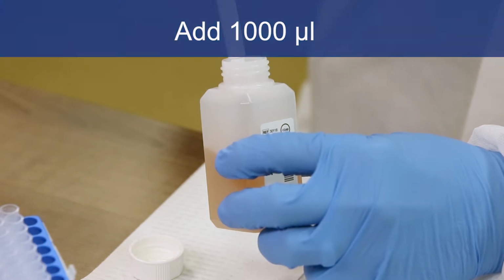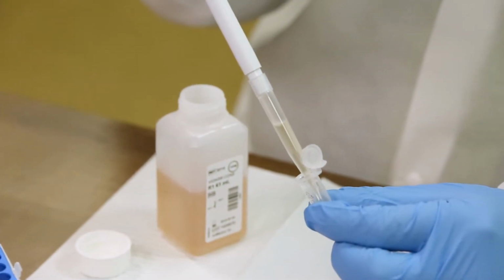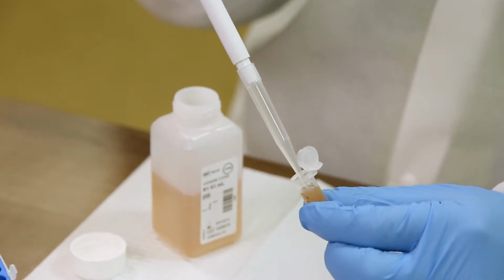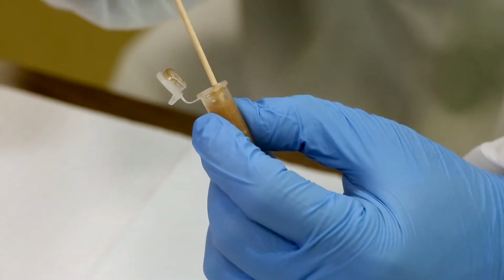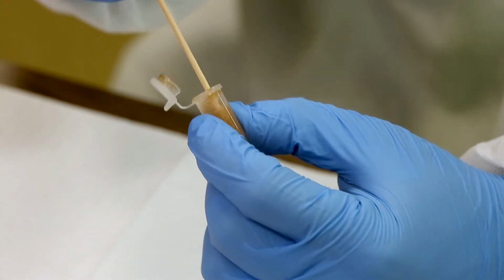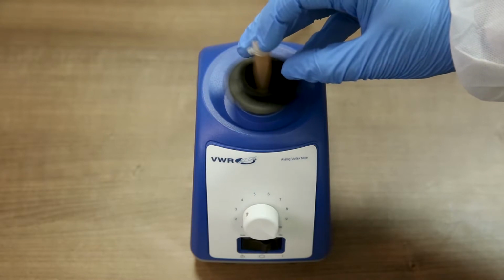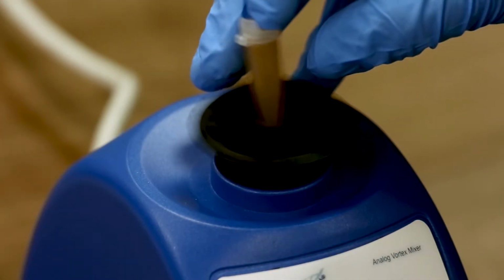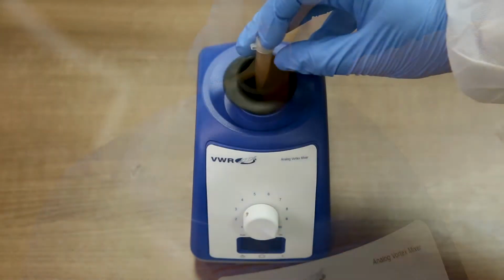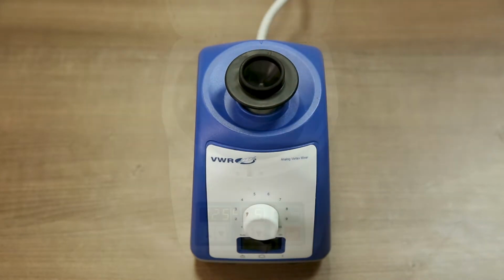Next, add 1,000 microliters of pre-treatment reagent R1 to the sample tube using a pipette with a disposable tip. Emulsify the stool sample using the applicator stick, and then mix using a vortex-type mixer until the sample appears homogeneous. It is essential that all portions of the sample be uniformly mixed with pre-treatment reagent R1.